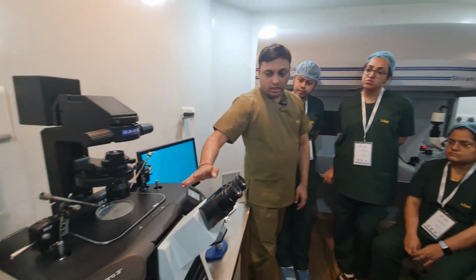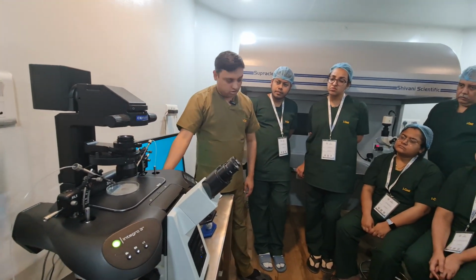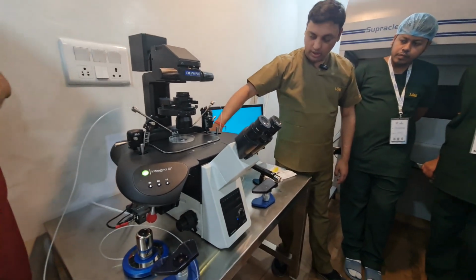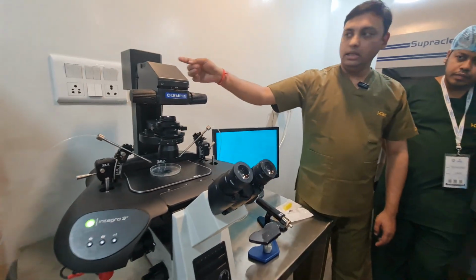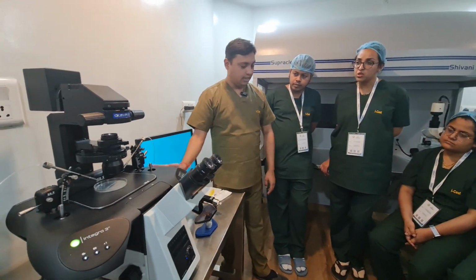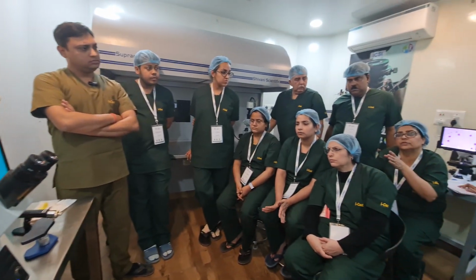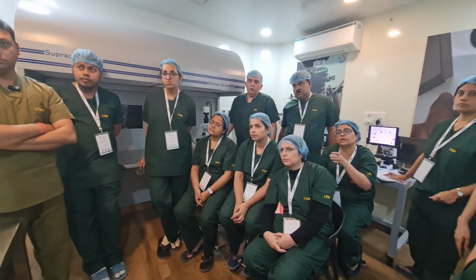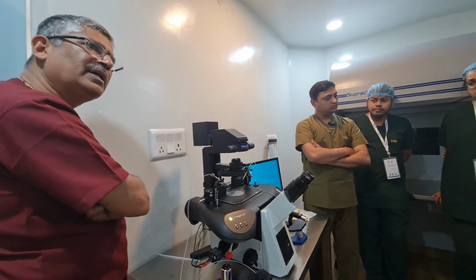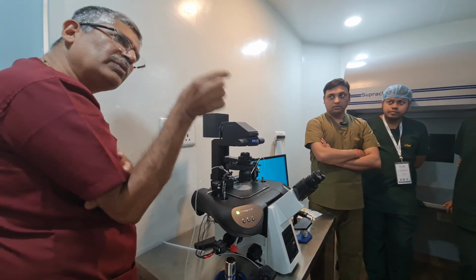Correct? Now this is all about the microscope. This is the light source generator. Here you turn it on and then slide. For Nikon, it's simple, one LED is there, connected, and this part you will not find. Correct? Sir, but I think, as told by you, we should always go for halogen. No, I always told you that halogen is a warm yellow light, and LED is a white light. You always feel that when you use a warm yellow light, you get better resolution.